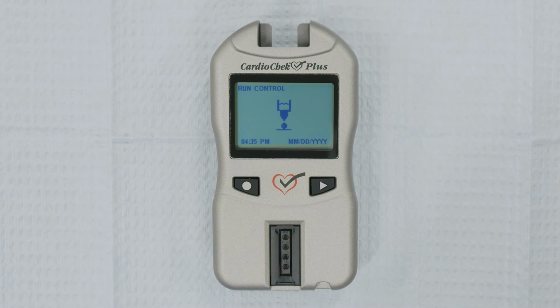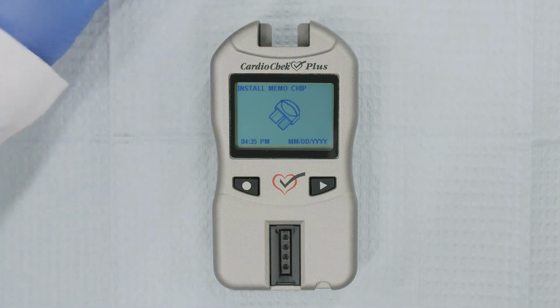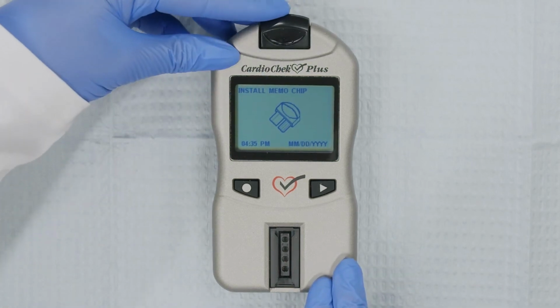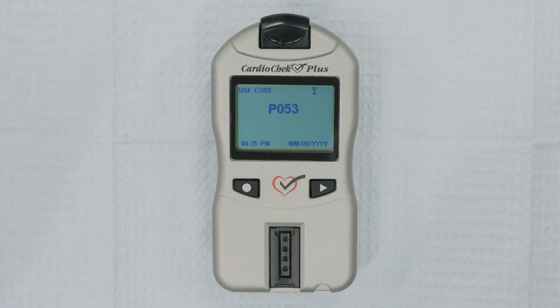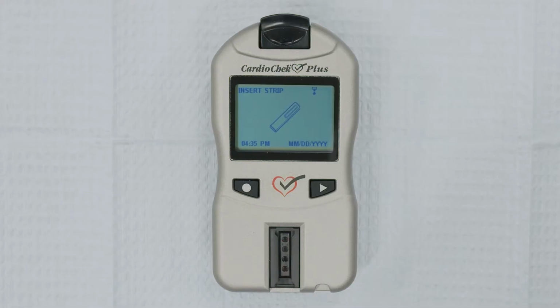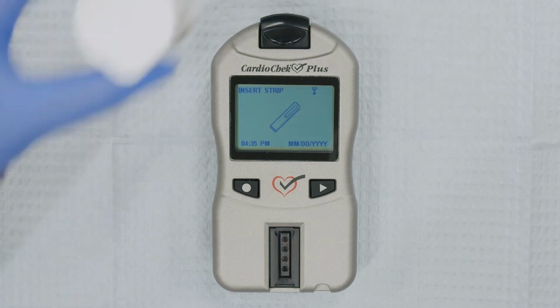Press Enter. Run Control will appear on the screen. Press Enter. Install Memo Chip will appear on the screen. Insert the Memo Chip into the Memo Chip port. Make sure that the lot number that appears on your analyzer display and the test strip's lot number match. Insert Strip will appear on the display screen.